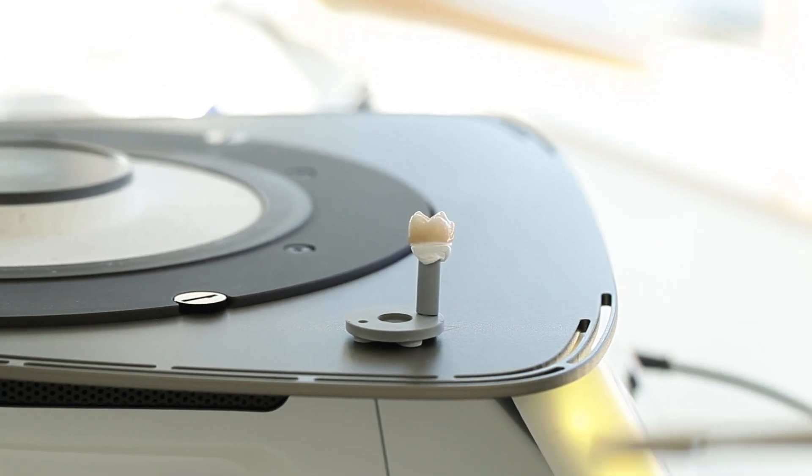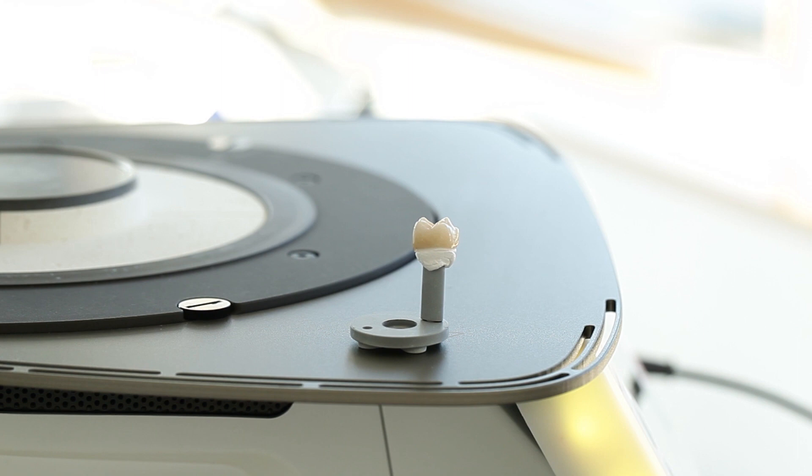Do not touch the hot object with metal tongs. Do not blast or quench the hot restoration.